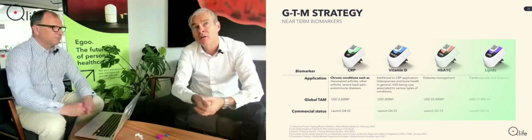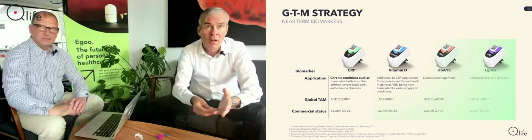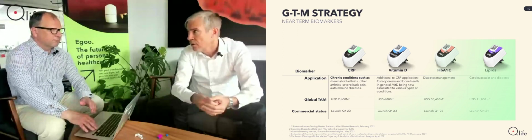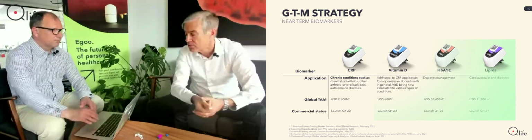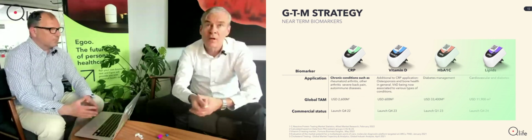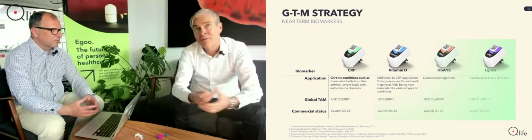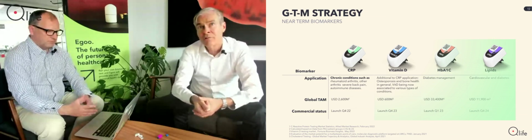I can say that in this relation, we are obviously very focused on CRP. But we are also having a portfolio of other biomarkers that would be a nice complement, both to our health practitioners, but also to people in general for consumer health. In this case, we are working with vitamin D, which is related to whether you get enough vitamin D. A lot of people are concerned about their levels.